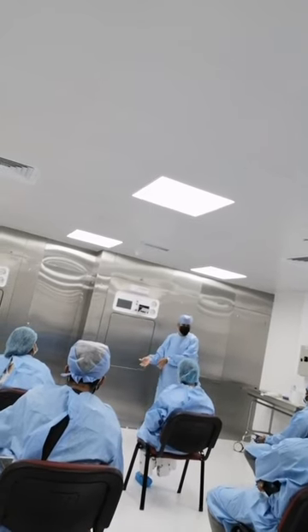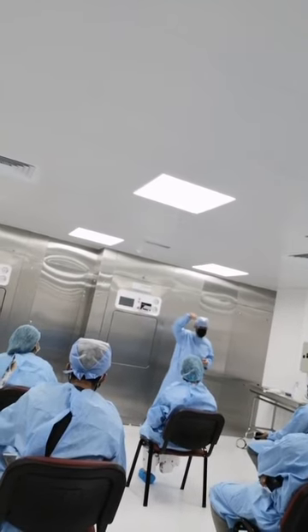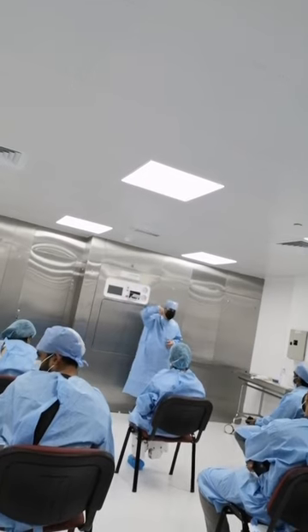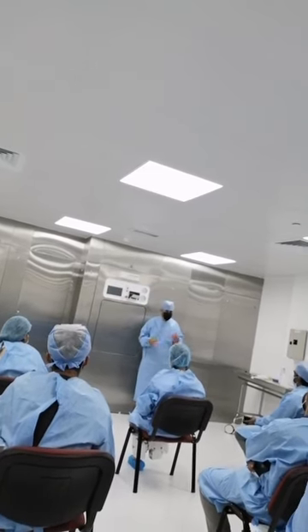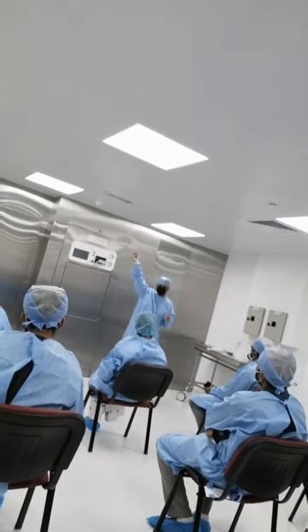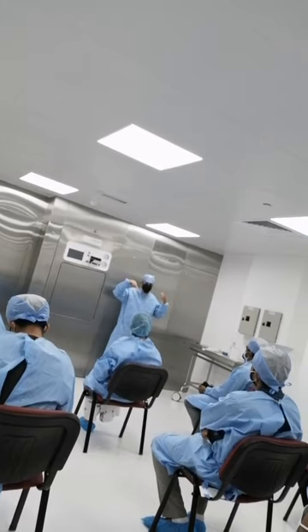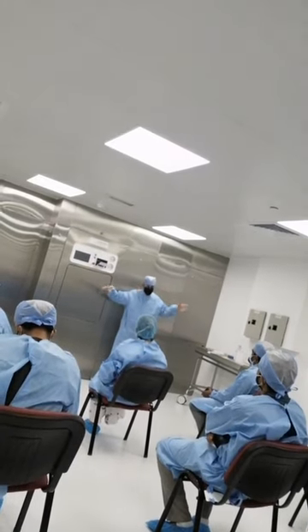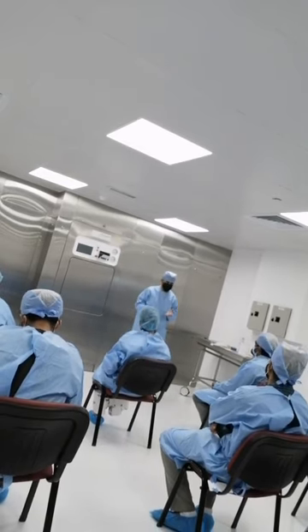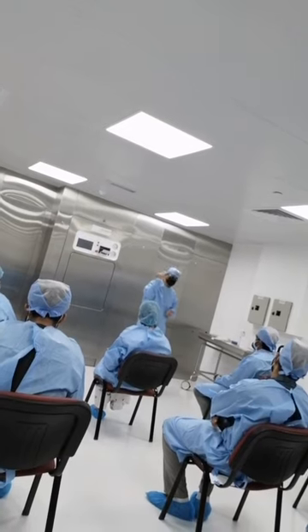We call it pack control. It will go with the pack. The surgeon or the over-nurse will see this, but you will not. You are like a cook doing the meal but not tasting it — somebody else is tasting it for you. You do your work, pack it, send it somewhere else. You cannot open it, you cannot test it. That's why you use this kind of testing.